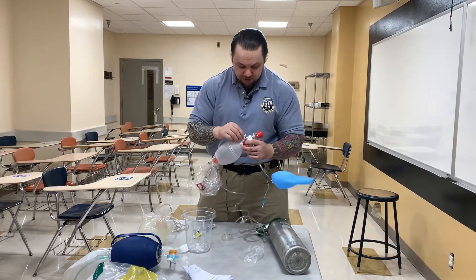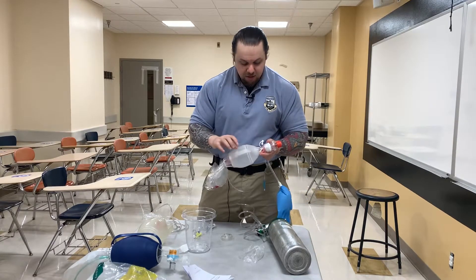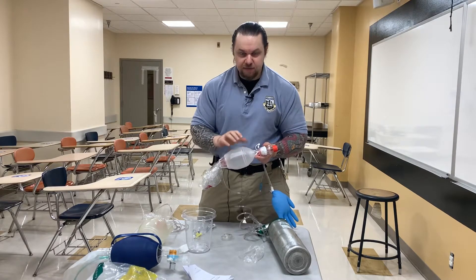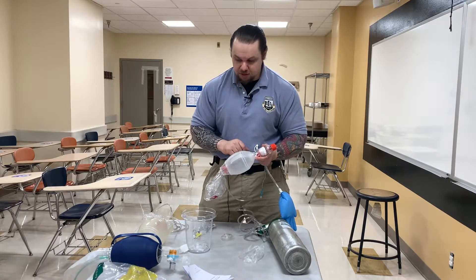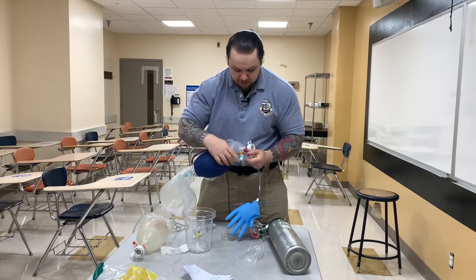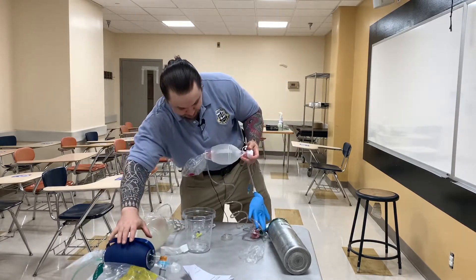There's another component here — the manometer port. A manometer connects here and gives you real-time feedback on your peak inspiratory pressure in the airway every time you squeeze the bag, indicating how hard you're squeezing and the resistance you're meeting in the patient's proximal airway. For this manufacturer, the manometer port is this one here. For the Ambu bag, you place the manometer on this port. Each manufacturer places it differently.